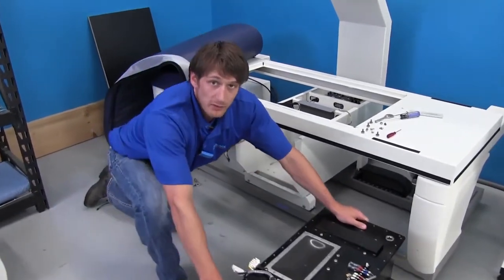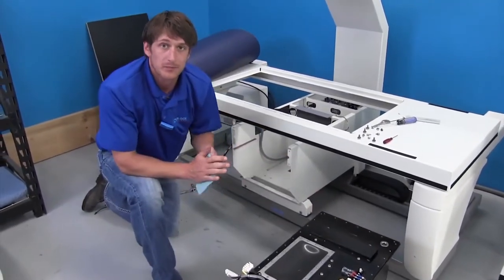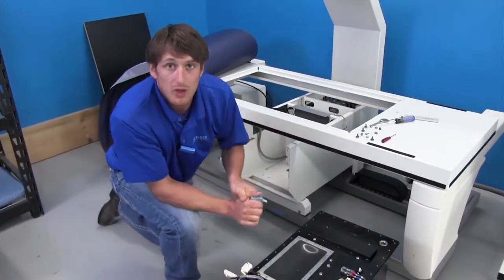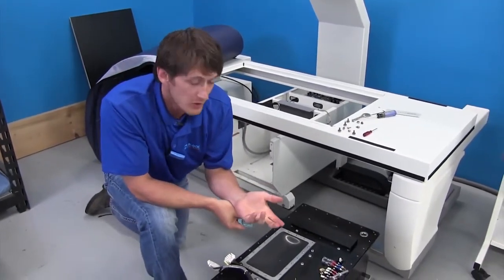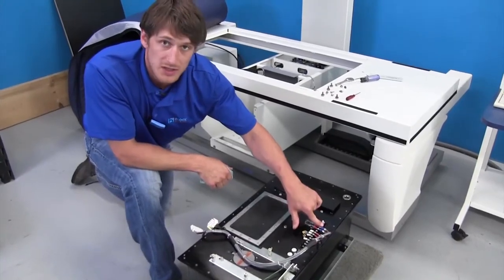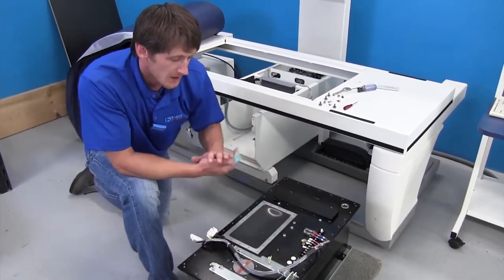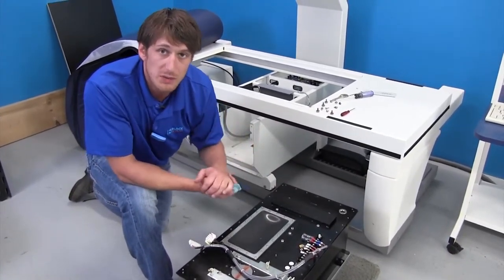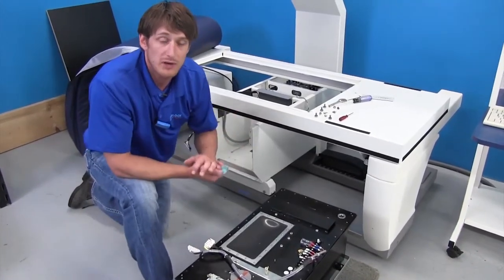And that's how you safely remove your high voltage tank. One thing to look out for is when you receive your other tank, you may have to save this cable for your termination connections on top of the tank. And then basically just repeat the process to put everything back in.